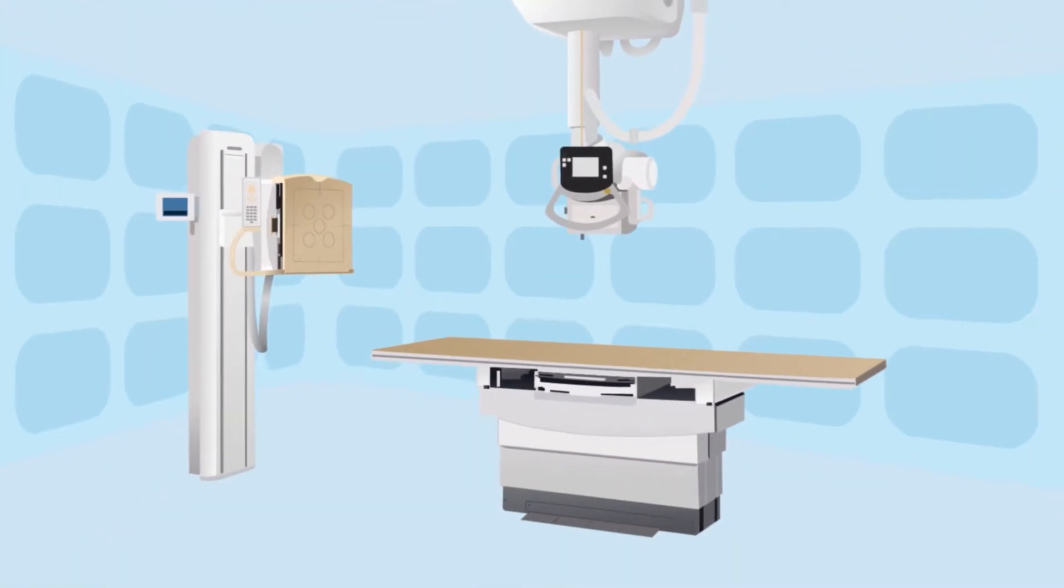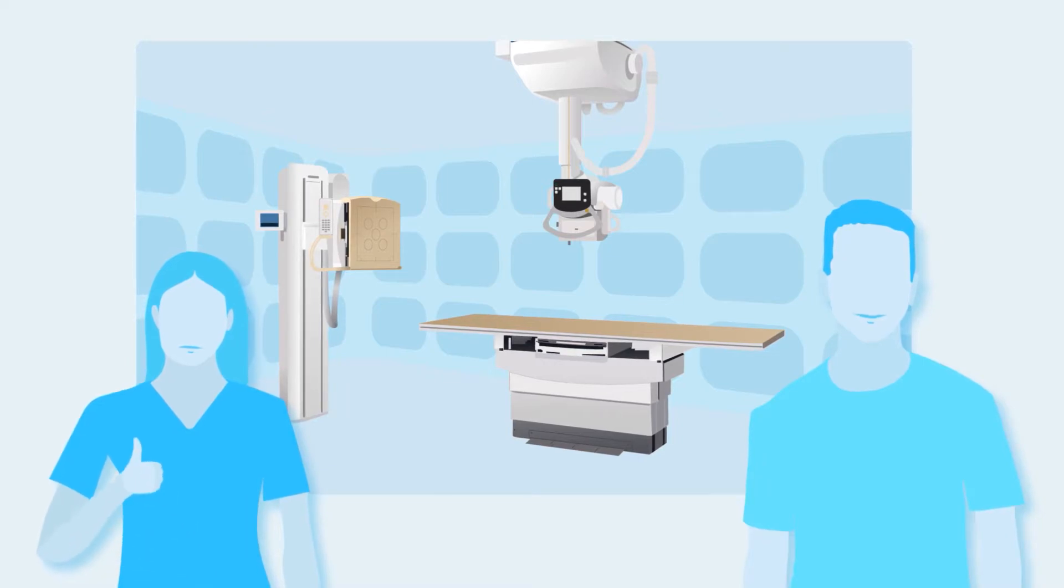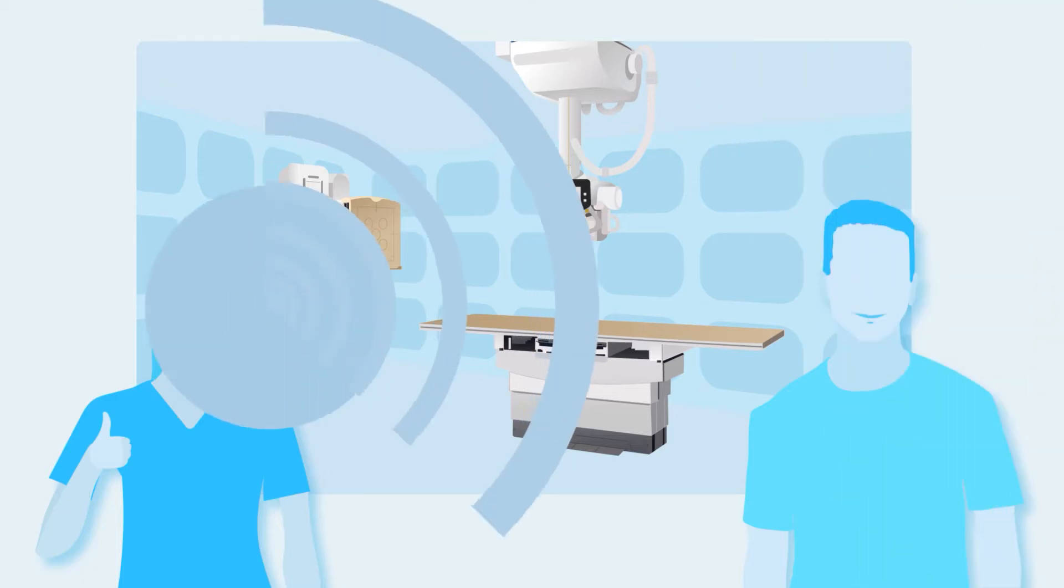Confidence in safe machines is crucial for patients and for the everyday medical staff heroes so they can focus on their important jobs instead of worrying about excessive radiation doses.